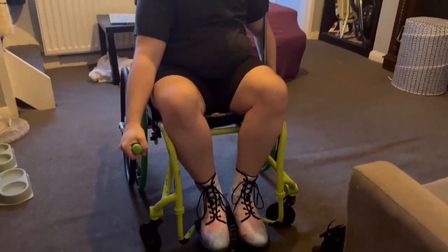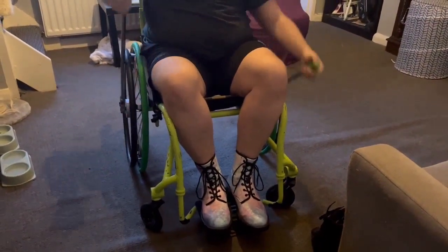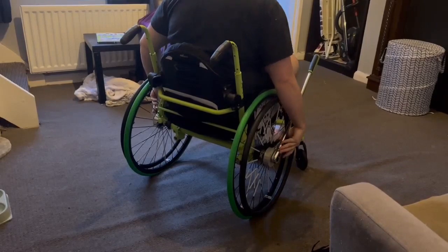You can switch. You can also turn. Right now I have to turn a little tighter — switch one to go each way, turn the other way, swap them out.